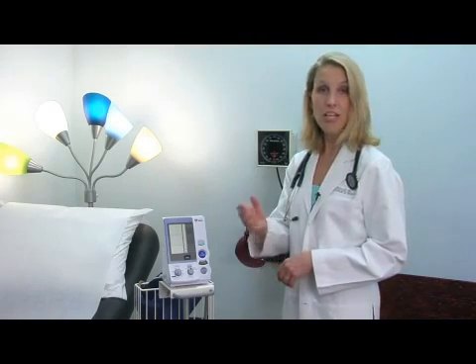When we talk about calibrating a device, it implies zeroing out a scale or actually changing the machinery — this isn't really what we do with these devices. In my hypertension clinic, I have my patients bring their home machine in on several different visits and we make readings from their home machine against the wall unit at the same time under the same circumstances. It's okay if these units vary; what you want is consistency. I would rather have a blood pressure machine that reads ten points high every time, rather than one that reads perfectly but not every time.